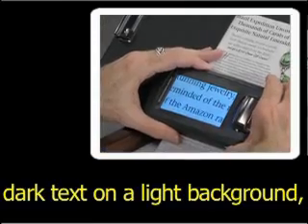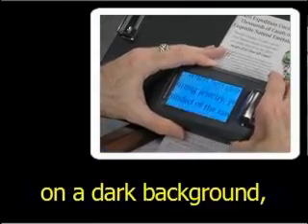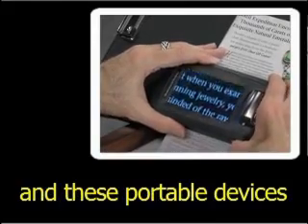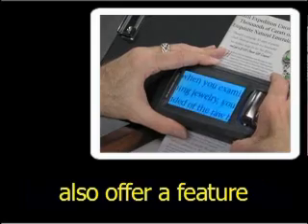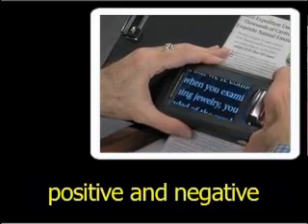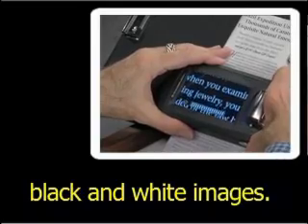As with other devices, many users will prefer dark text on a light background, or light text on a dark background. And these portable devices also offer a feature that provides high contrast, positive and negative black and white images.